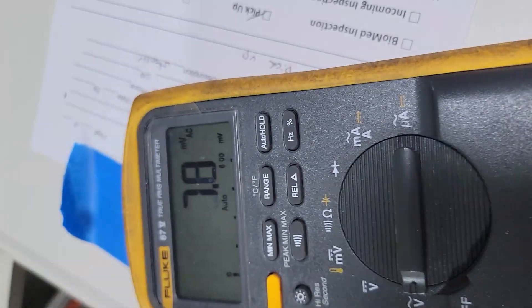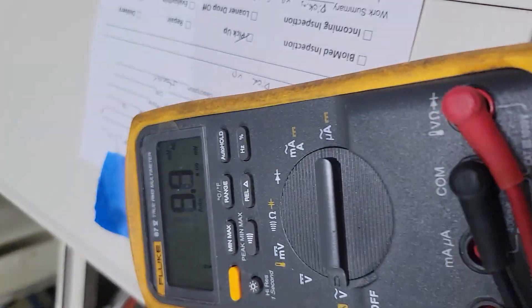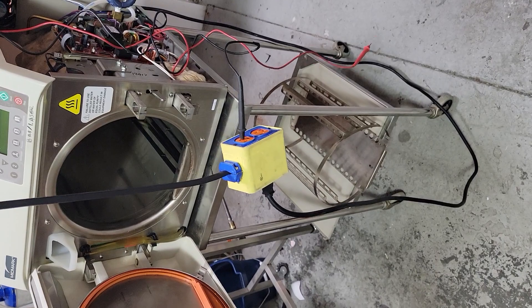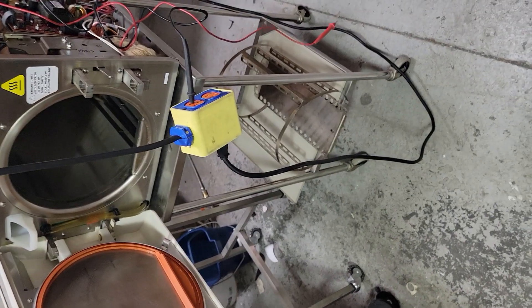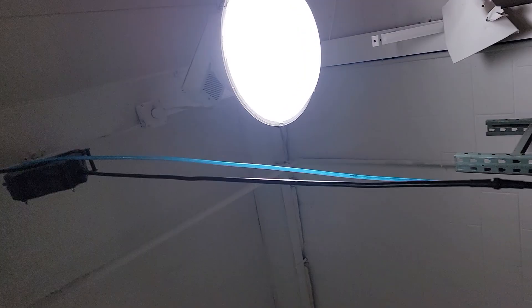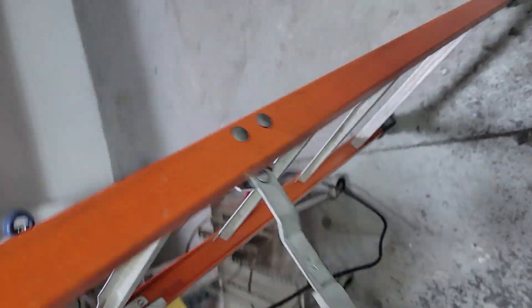Let's get our meter and check — and indeed there's no power. Hot to ground reads millivolts, so go check the breaker. I checked the breaker, still without power. Very often we use the KISS principle — Keep It Simple, Stupid. The breaker was good, I flipped it anyway, but — the plug was half out. And now it has power.